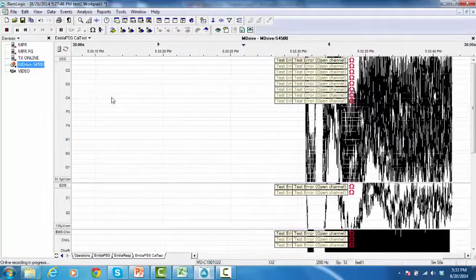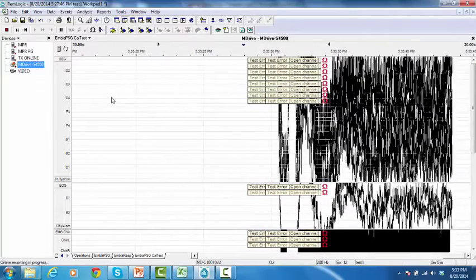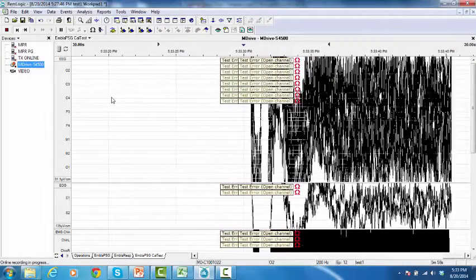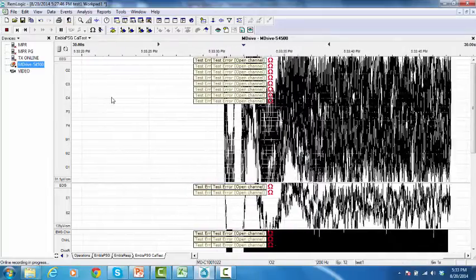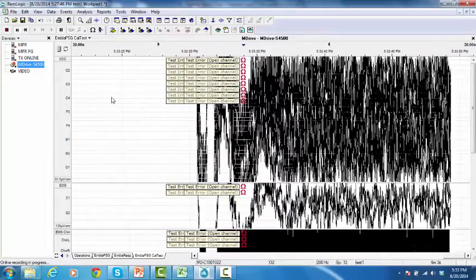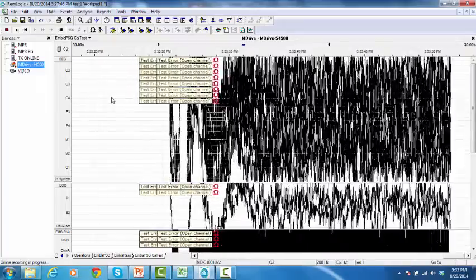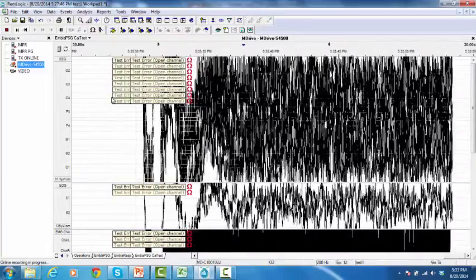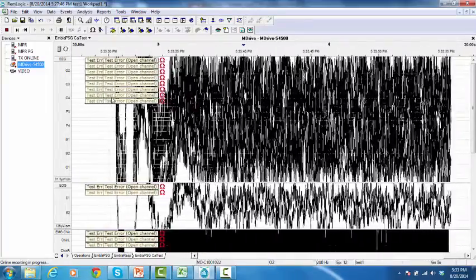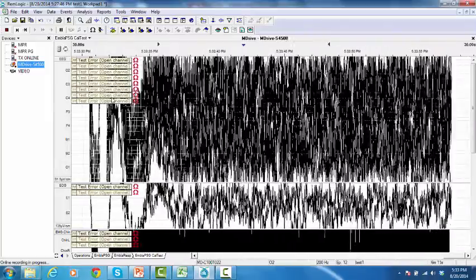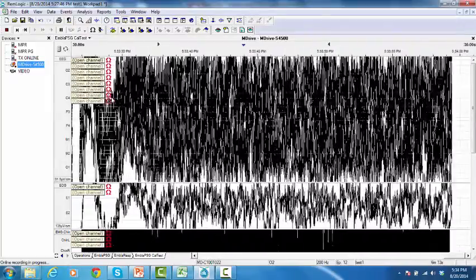If the M-Drive doesn't pass an impedance test, you can use RIMLogic to calibrate the test signal. When it is calibrating the test signal, the M-Drive sends a set of signals to the bedside unit to make sure that the bedside unit is working correctly.